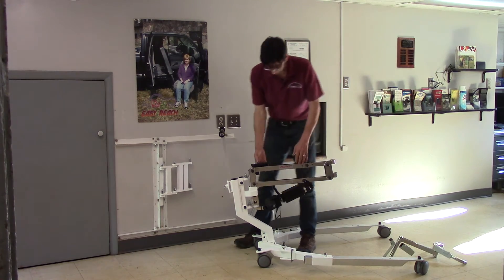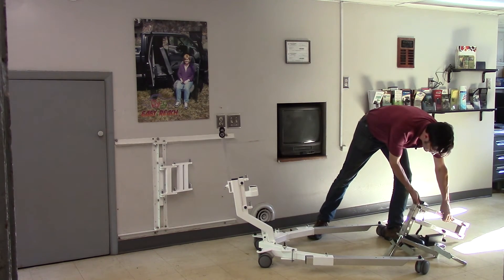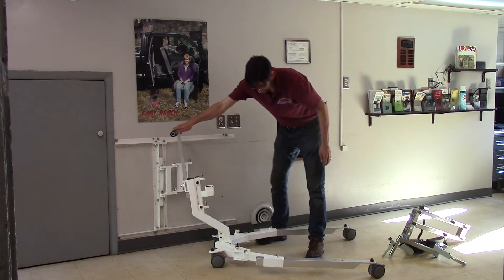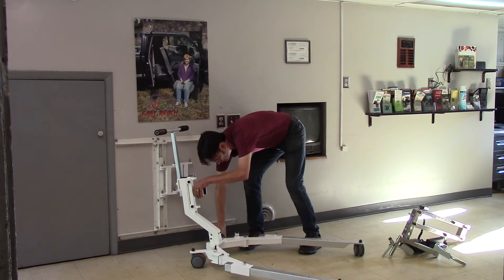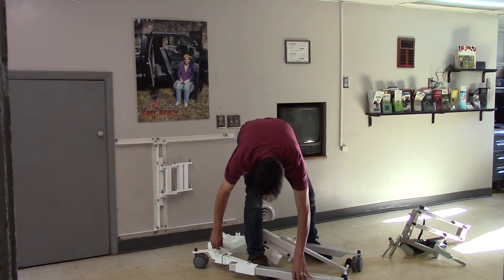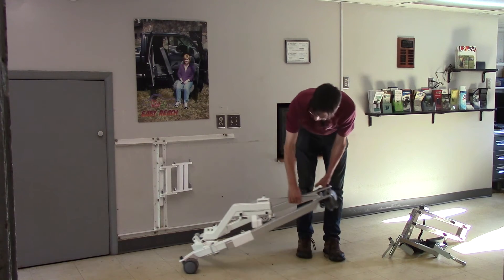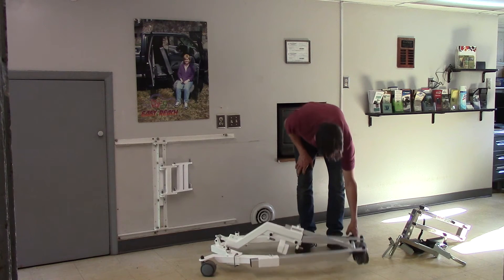We're going to actually remove the multi-lift and place it right there. The normal operation of the EasyBase, of course, would have you take the mast assembly, bring it down, and then swing each of these legs over the mast assembly, thus allowing you to travel quite easily with the EasyBase. So that's your normal setup.